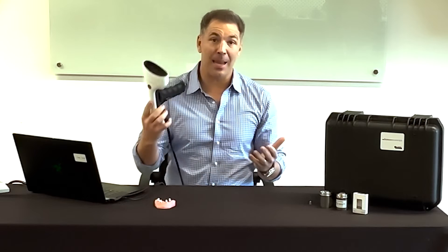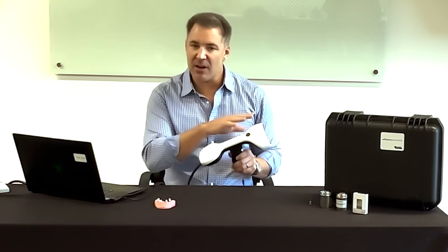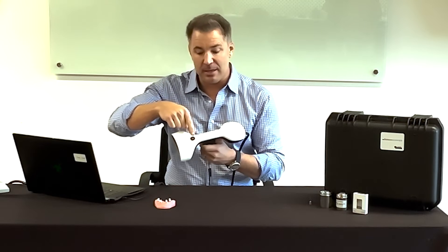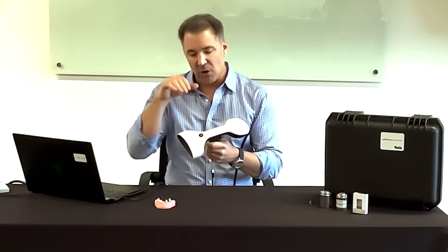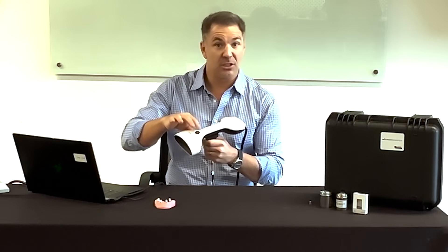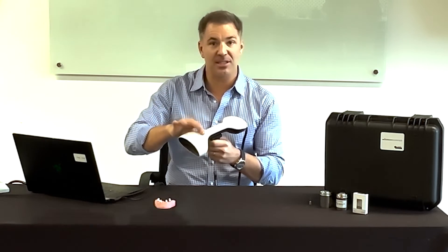Here's the Micromapper itself — very light. The camera weighs around one and a half pounds. Competitors are around six and a half to seven pounds and are very bulky. It's a very sleek, modernistic design. On top, it's basically a press button — completely sealed, so no holes for blood or debris to get inside. Just a quick touch to turn it on and off. Very simple to use.